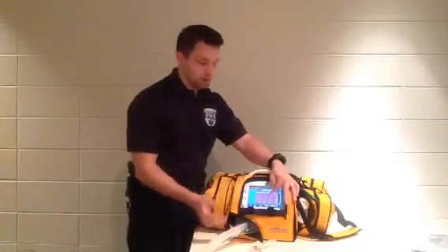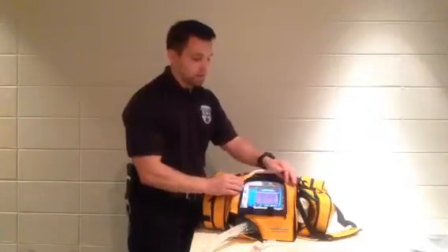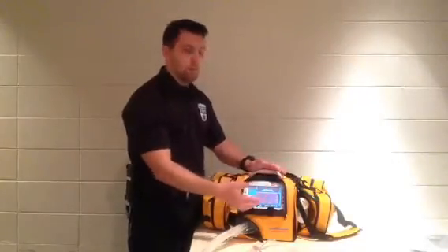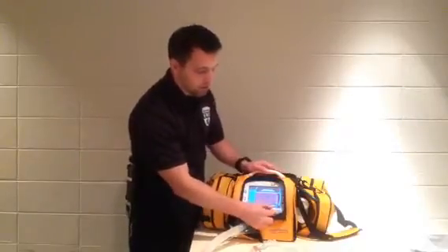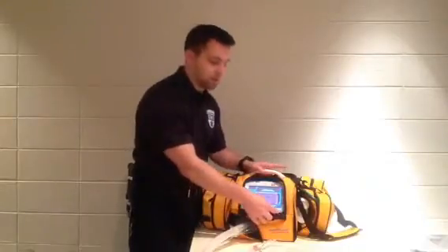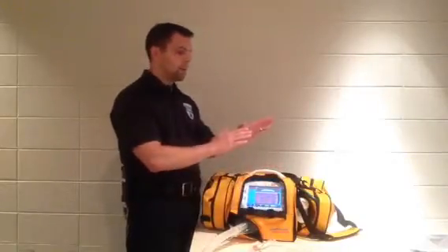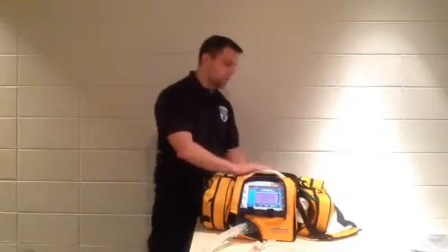Down here is a nice feature — it's telling you your battery time. Right now it's showing a battery time of 9 hours and 30 minutes. This has one removable battery — well technically two, but one removable battery.